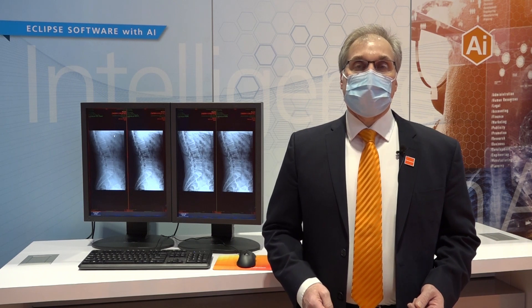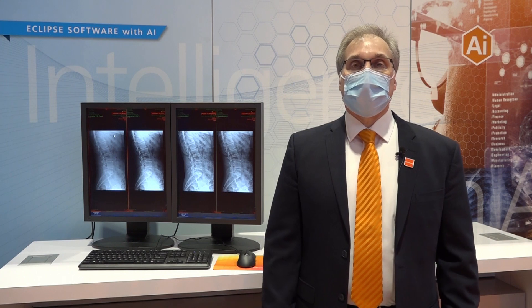Eclipse powers features in three key areas: imaging intelligence, workflow intelligence, and analytics intelligence. Imaging intelligence embeds CareStream's most advanced image processing for superb image quality, improved diagnostic confidence, and increased dose efficiency. It further serves as the foundation for a number of our advanced applications.